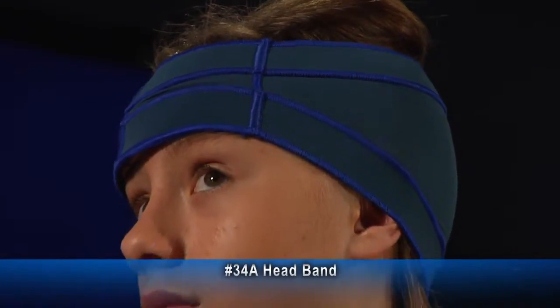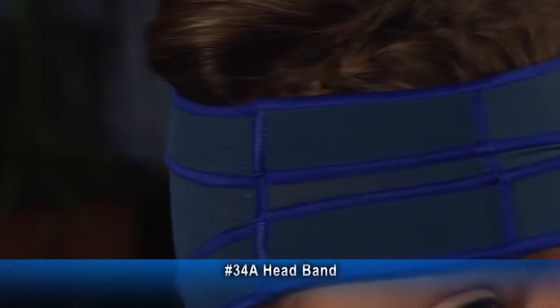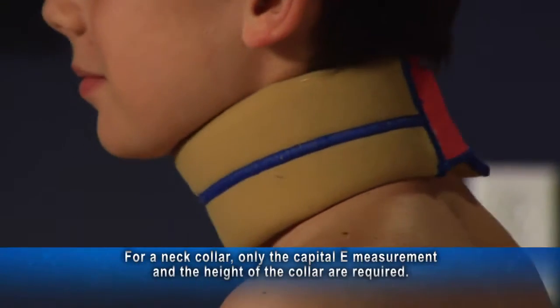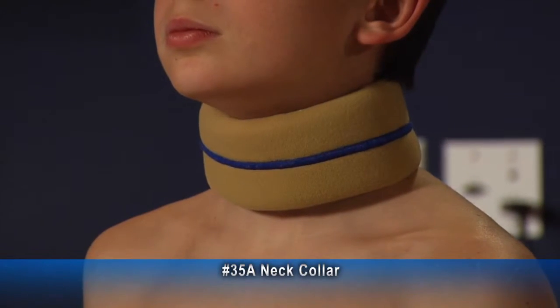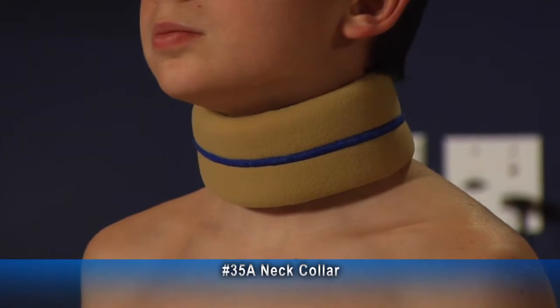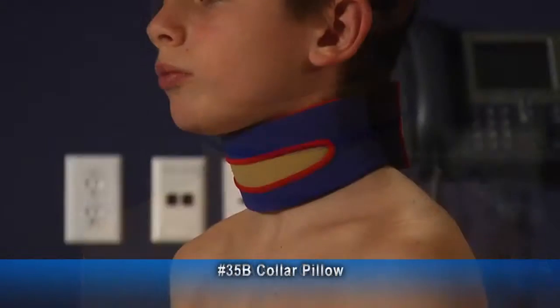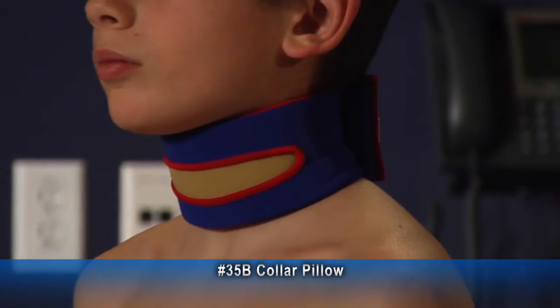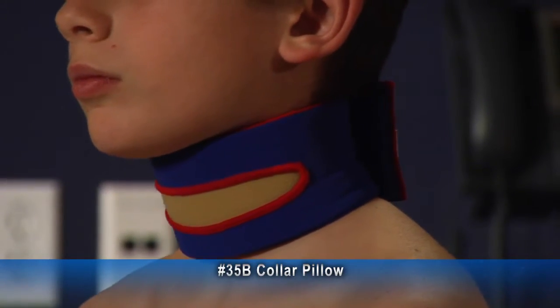Garment number 34A is a headband. A headband covers the area on the forehead that needs to be targeted, applying pressure to the forehead. For a neck collar, only the capital E measurement and the height of the collar are required. Garment number 35A is a neck collar with a foam pad encircling the neck — it helps extend the neck, keeping the neck up. Another option is the foam collar pillow, which adds more compression while extending the neck and helping to hold the chin up.